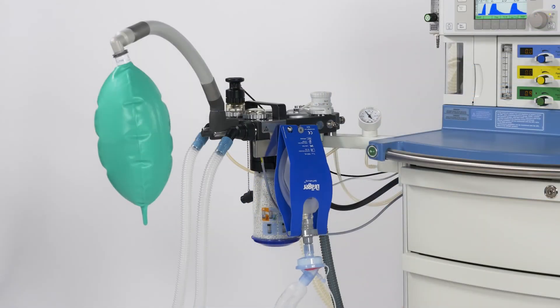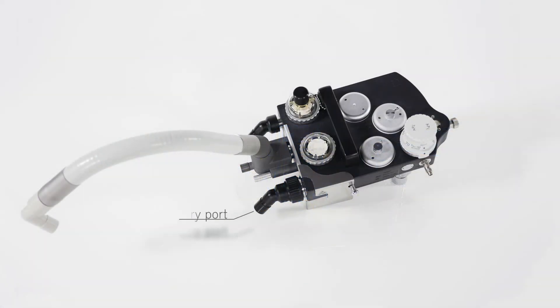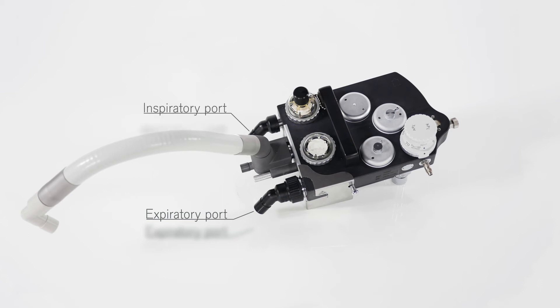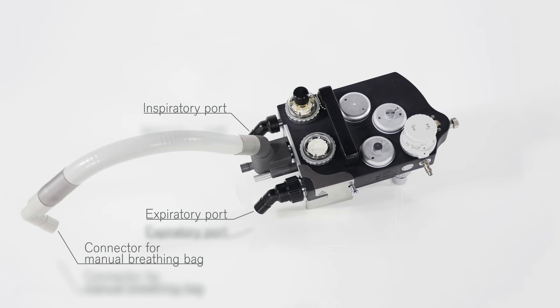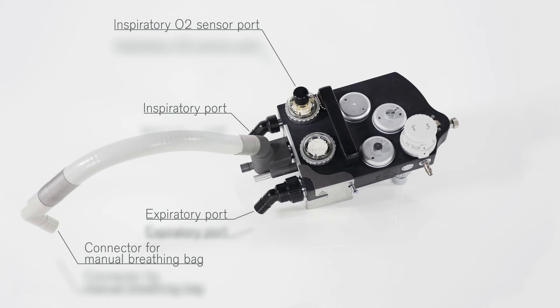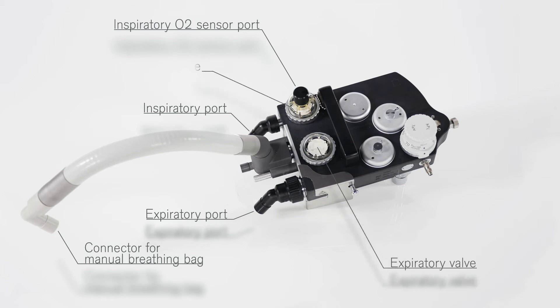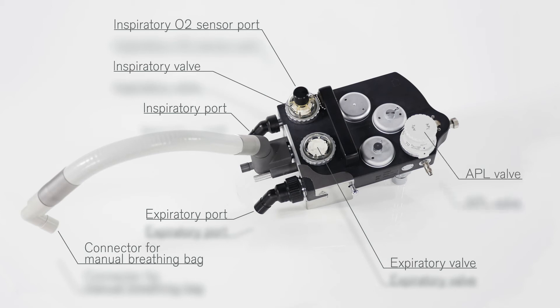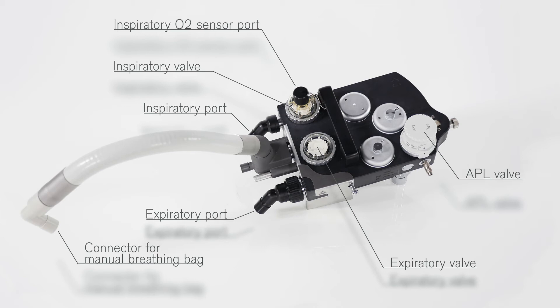Let's have a closer look at the components of the COSI. Here you can see the expiratory and inspiratory ports for the connection of the patient breathing hoses, and also the flexible breathing bag holder for the breathing bag. On the inspiratory valve, you connect the oxygen sensor. On top of the COSI, you can see the expiratory and inspiratory valves. Here you can also find the APL valve, short for Adjustable Pressure Limitation Valve.